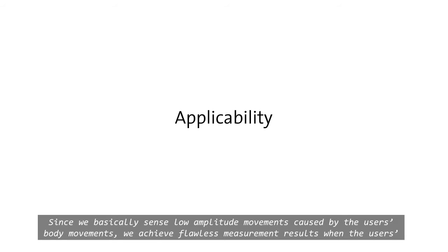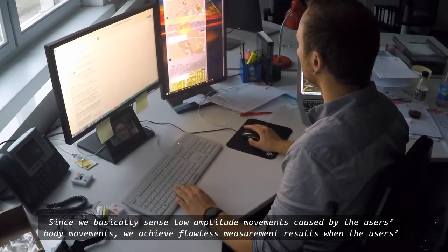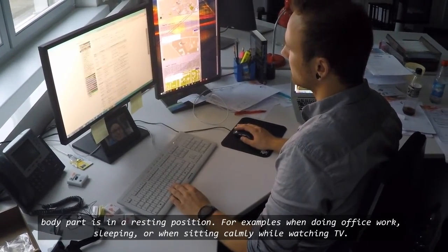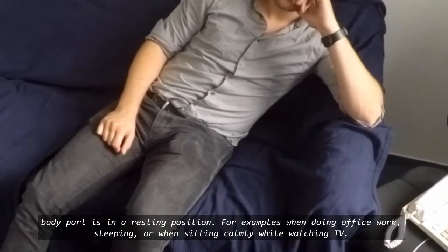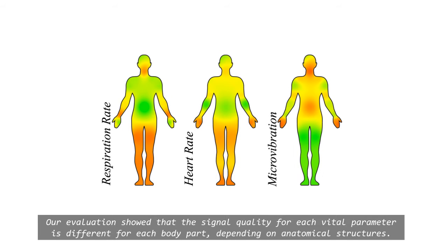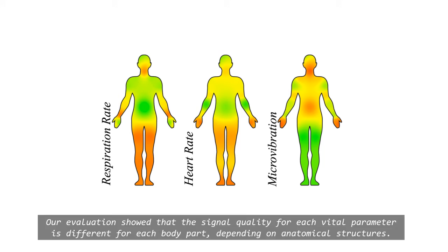Since we sense low-amplitude movements caused by the user's body, we achieve flawless measurement results when the user's body part is in a resting position — for example, when doing office work, sleeping, or sitting calmly while watching TV. Our evaluation showed that the signal quality for each vital parameter differs for each body part depending on anatomical structures.